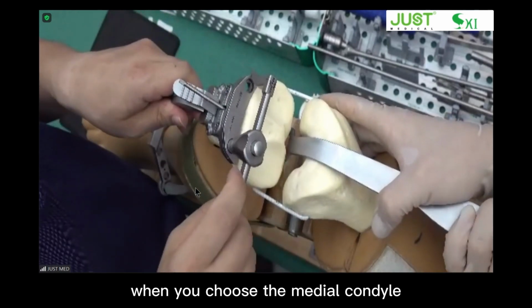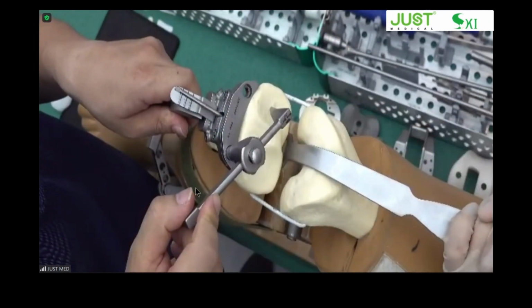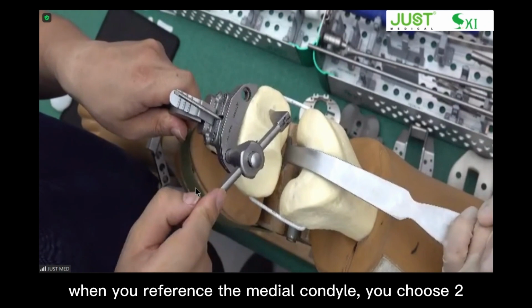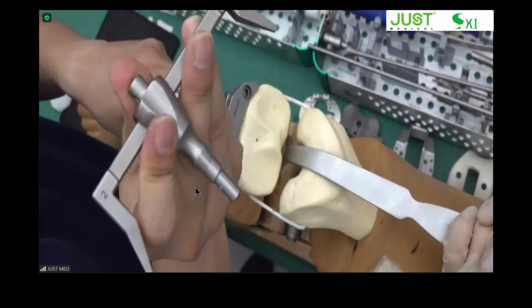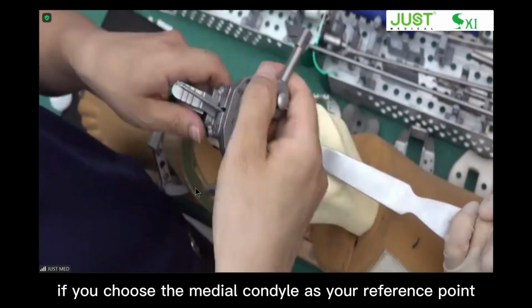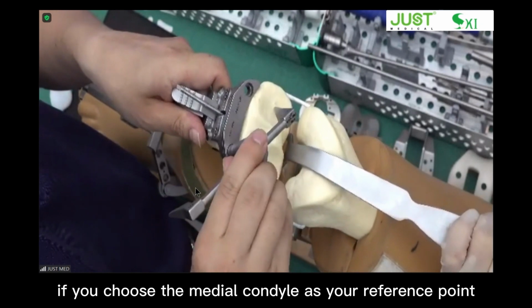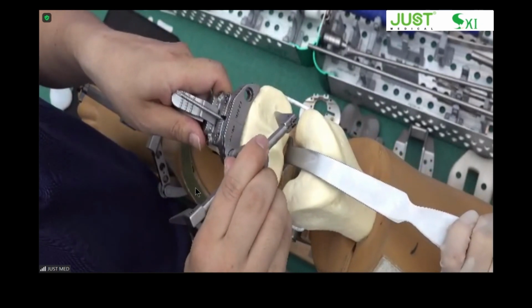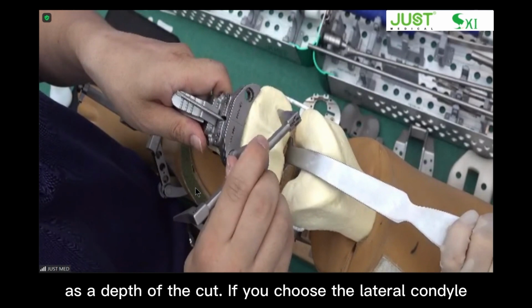When you reference the medial condyle, you choose 2. I can show you, 2 here. Here's 10. If you choose the medial condyle, the deepest portion, as your reference point, you set the stylus at 2 millimeters as the depth of the cut.